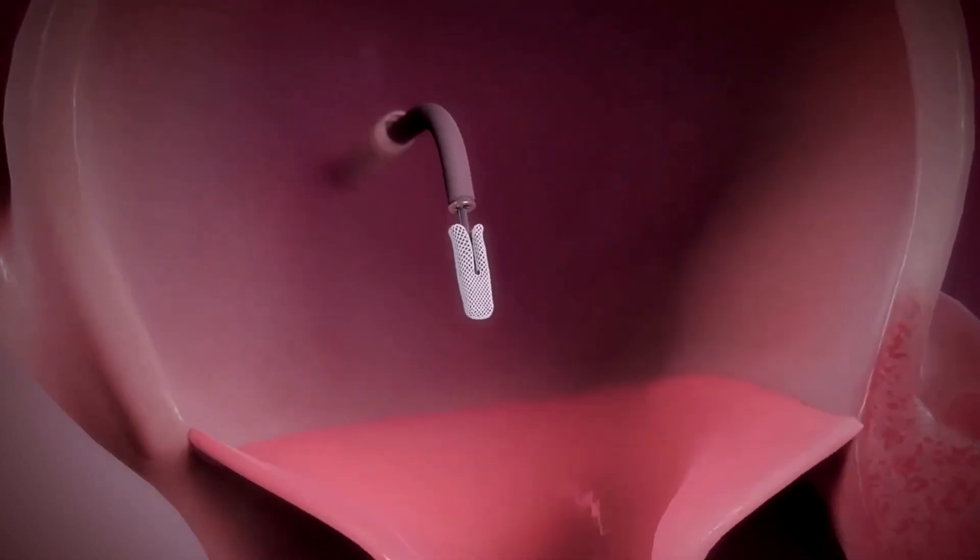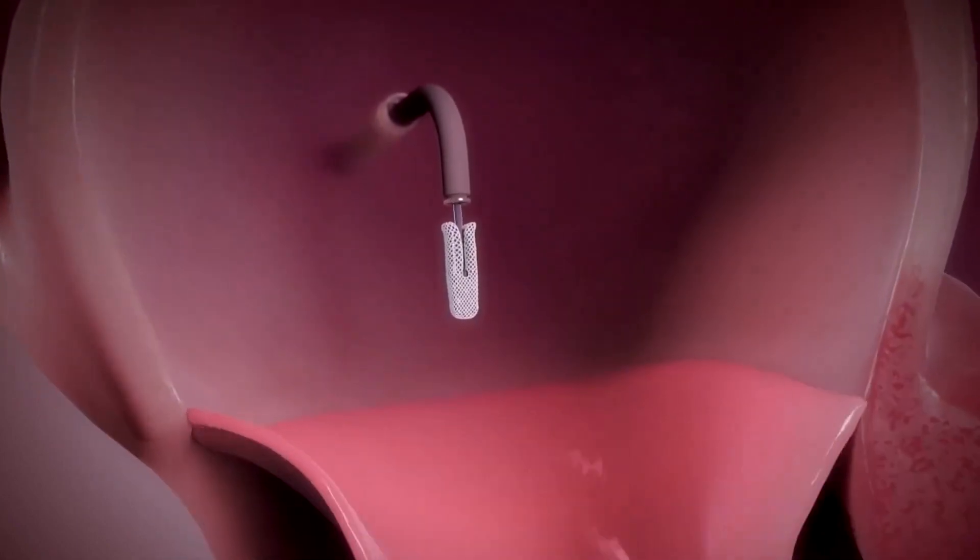All these knobs give us a lot of ability to move in the right direction. During the procedure, I'll have my partner Dr. Kim do a transesophageal echo — basically an ultrasound that goes down your esophagus where the food goes. Because the esophagus is right next to the heart and sits right behind the atrium, we get beautiful images — 3D images that are pretty amazing and can really guide us through the procedure.